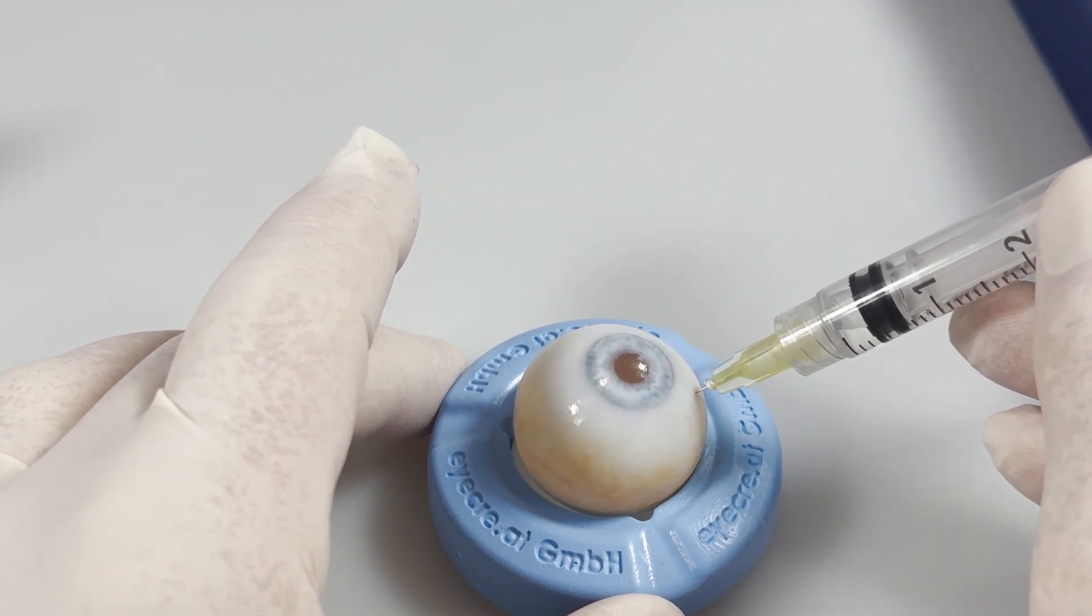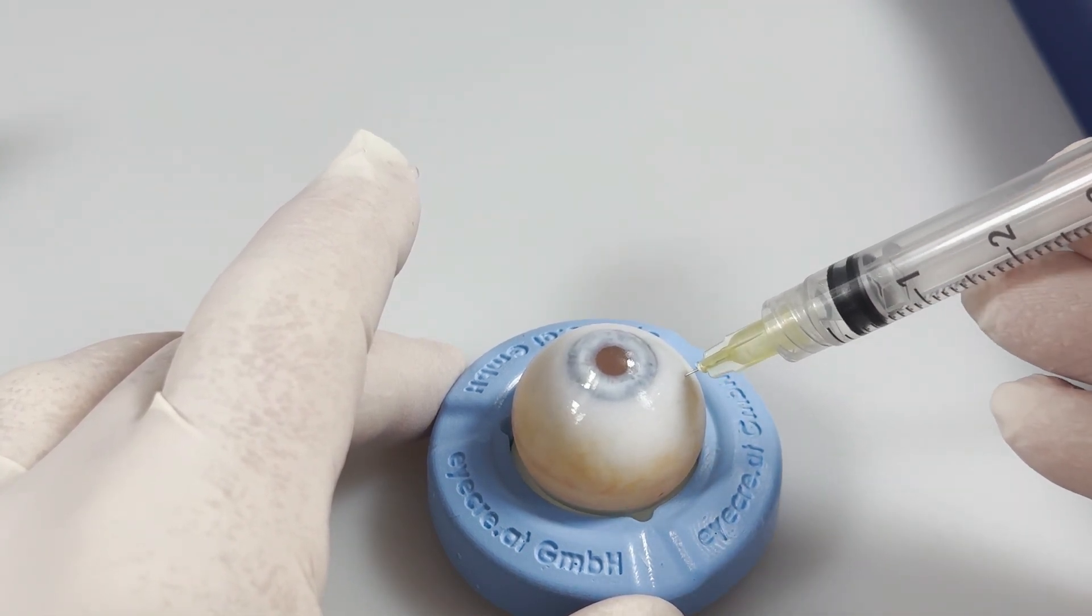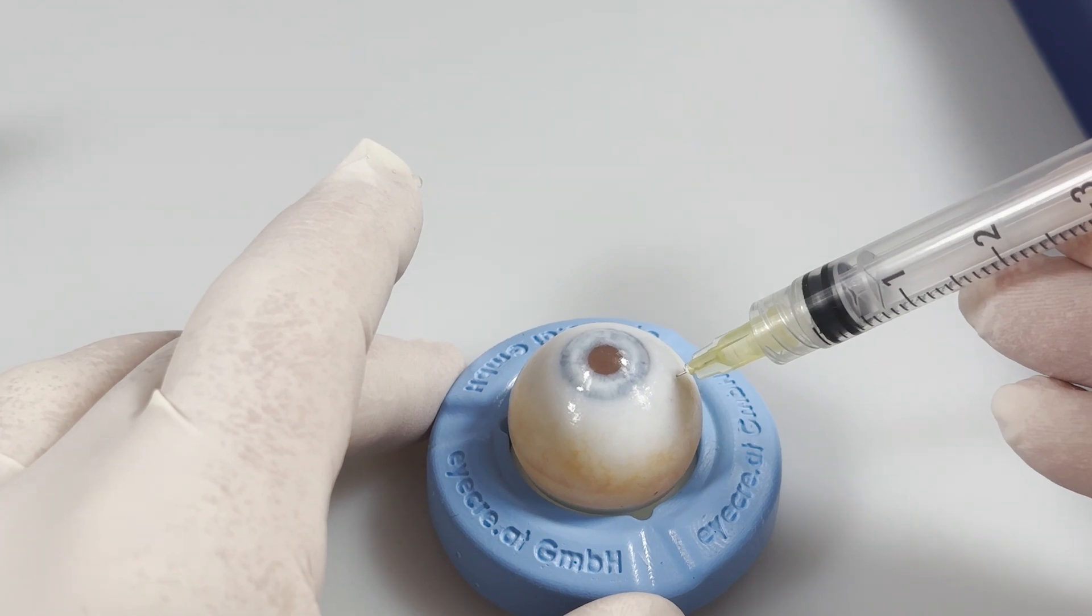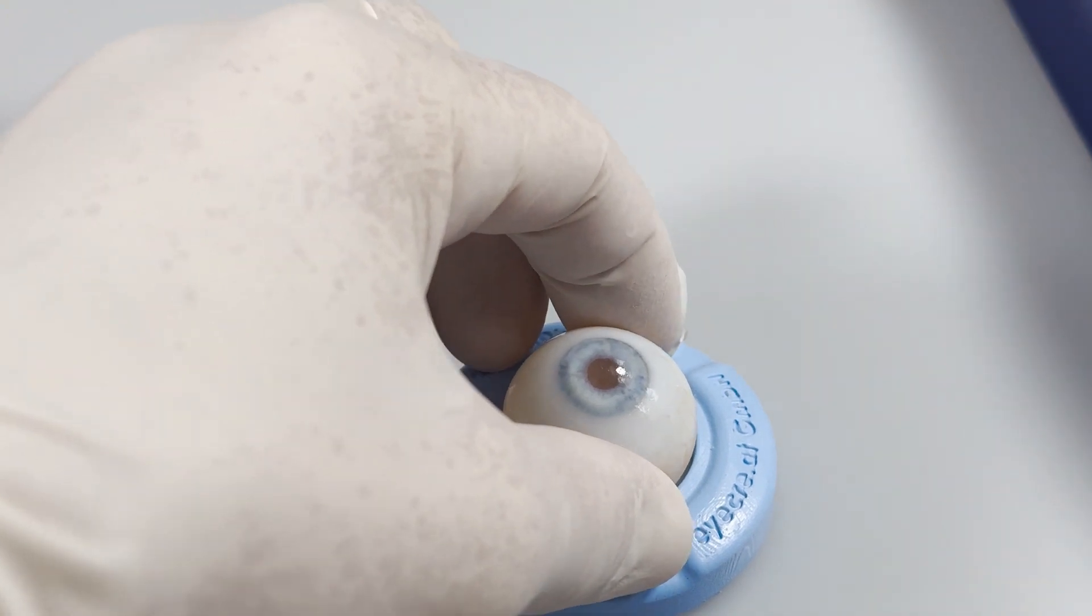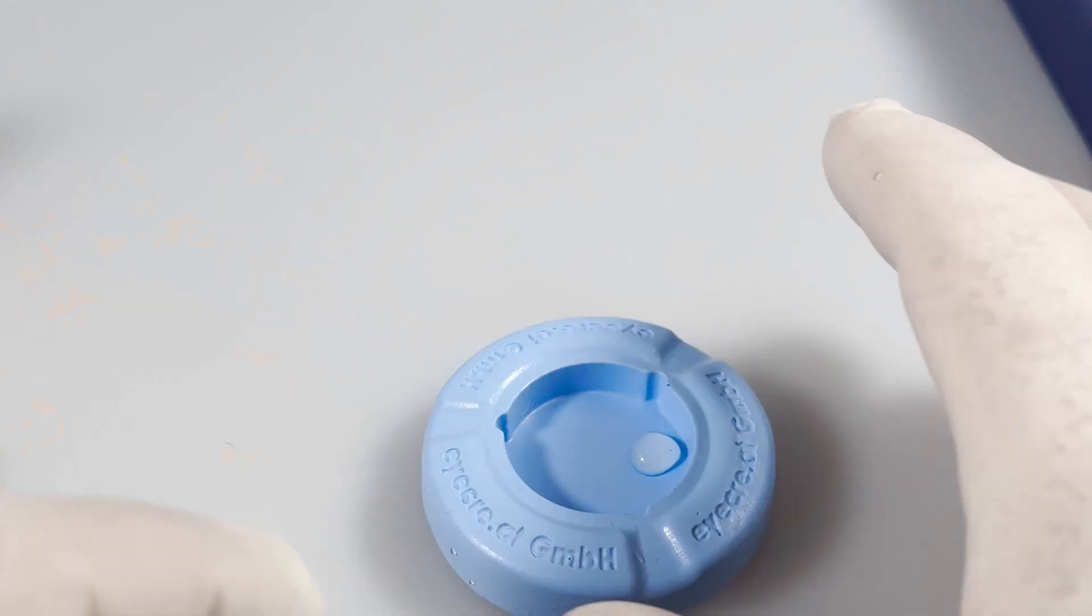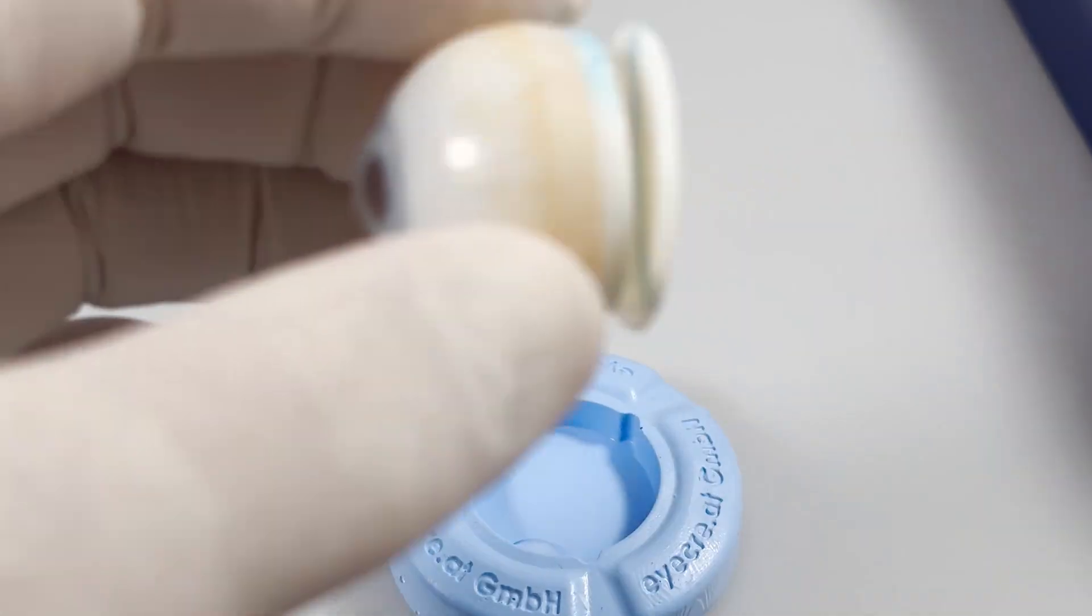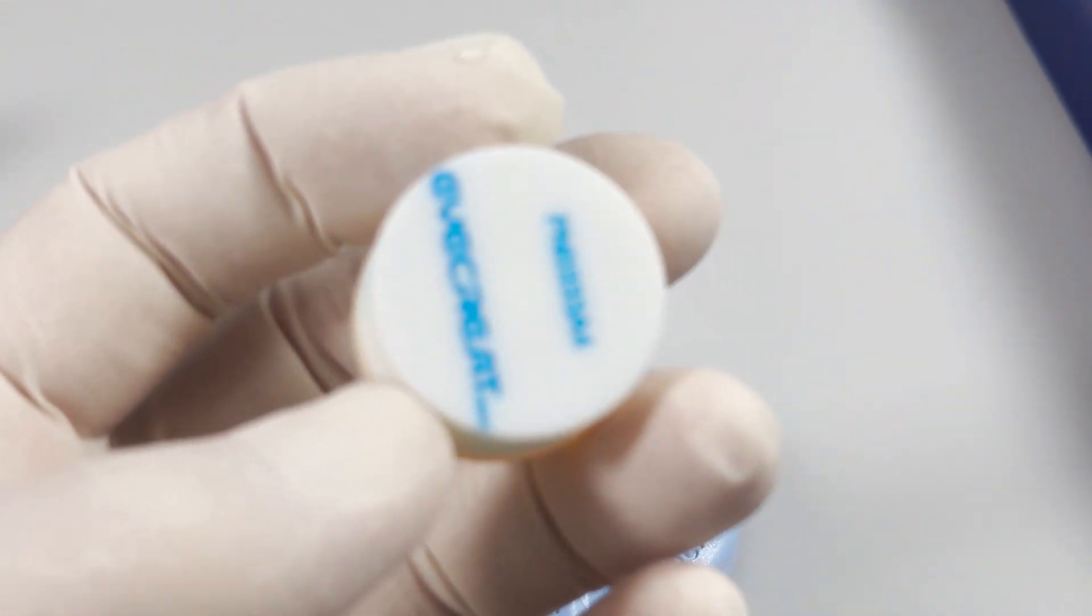As you see, it's very realistic. And the good thing is if you use our pad for eye, it's also holding the liquid. This is why we have this base.